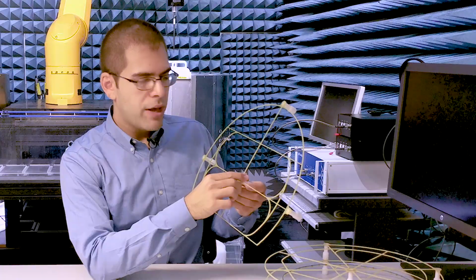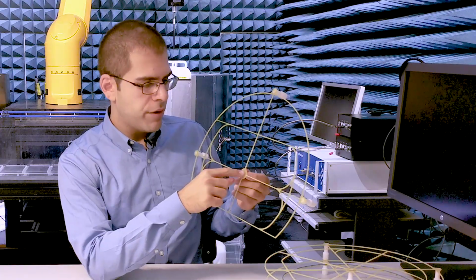Today I'm going to show you the test field diversity system that we've developed together with Zurich MedTech. We use a large cylindrical phantom, which we expose to a wide range of incident field polarizations in the MITS. We place the implant along a set of defined routings to create diverse incident field conditions along the implant. We have 6 different options for the routings that we've used so far.